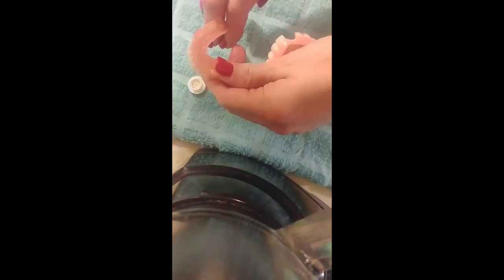And you're good to go — nice and shiny. Now let this sit out for about five or ten minutes, because you want to make sure that the adhesive is set before you go ahead and wear it. Now we can show you how comfort lining is waterproof and acts as a cushion for your denture.